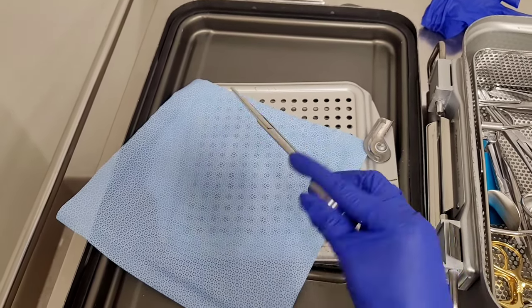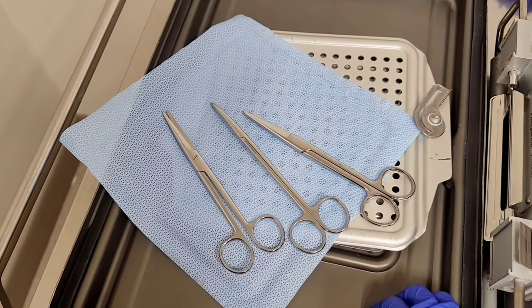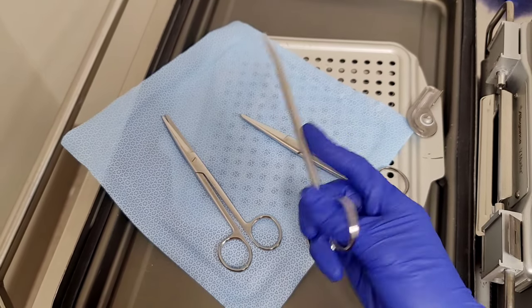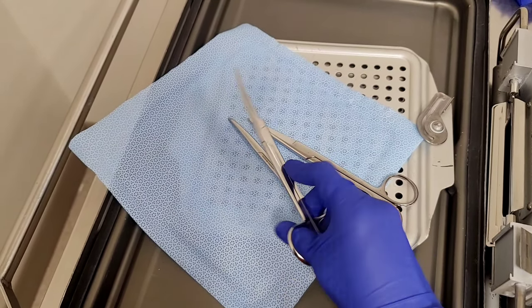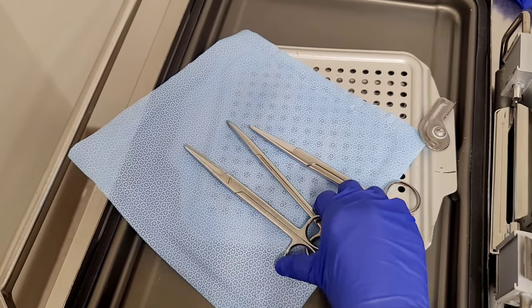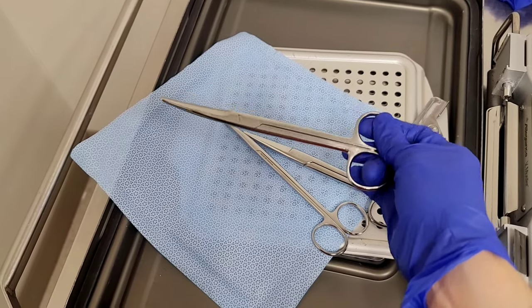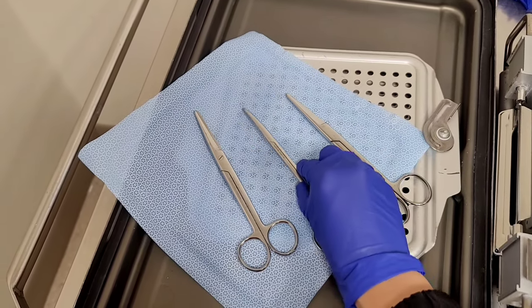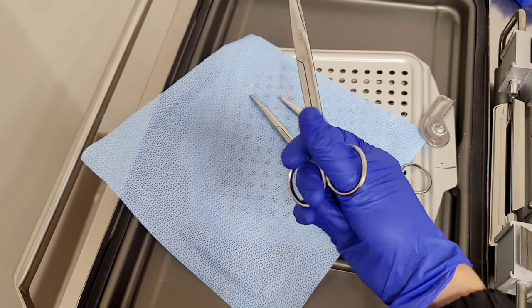It works for them, so it works that way as well. This works for every single scissor you have. This is the Mets — I would hold it the same way. This is the curved Mayo. This is how I handle them — like this. This one is very soft, so it's actually an easier demonstration. They would cut sideways or use their left hand too, but try out the third method I showed you — never the first, never the second.